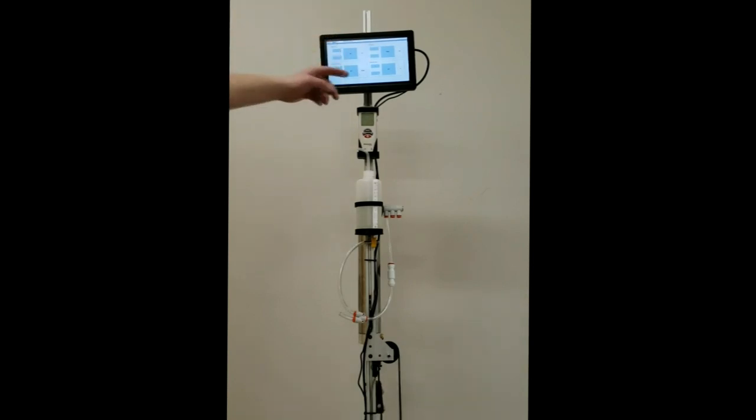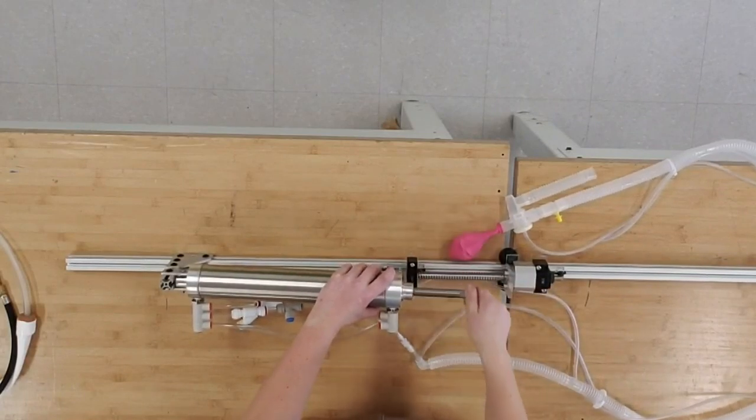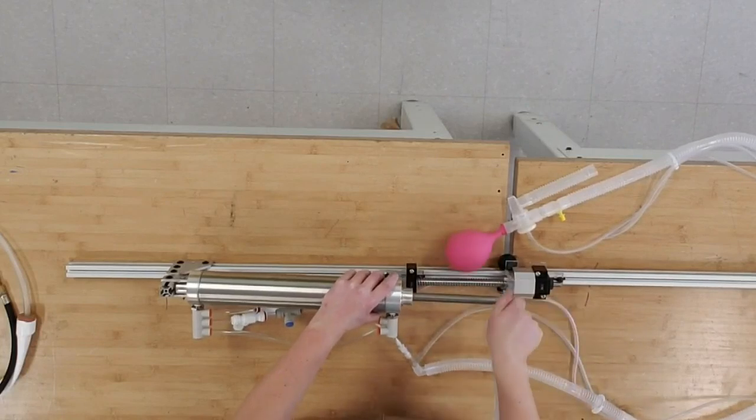They now have until June 1st. The group is working on adding some new sensors to enhance the ventilator's capabilities. The winning design will get help from organizers to get medical approval and then be manufactured.